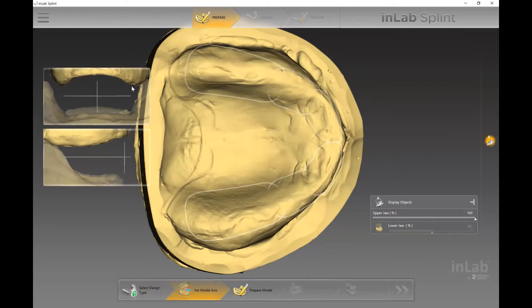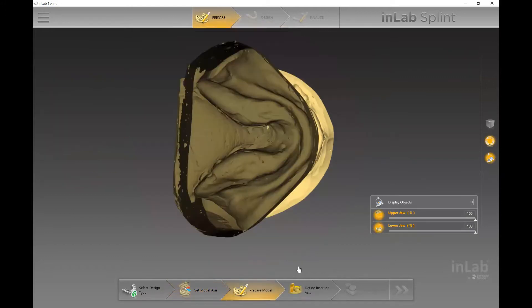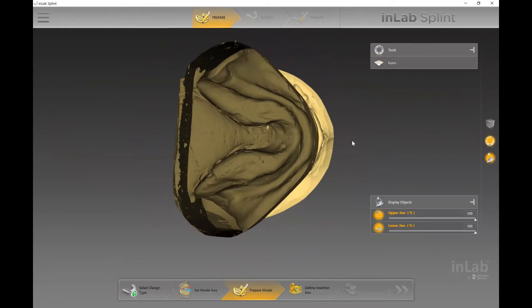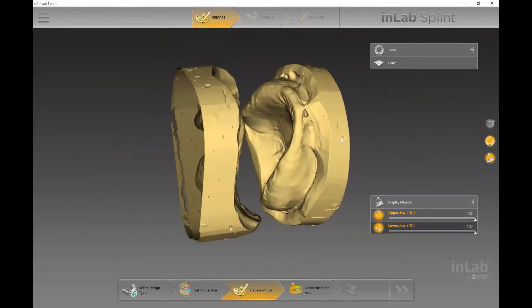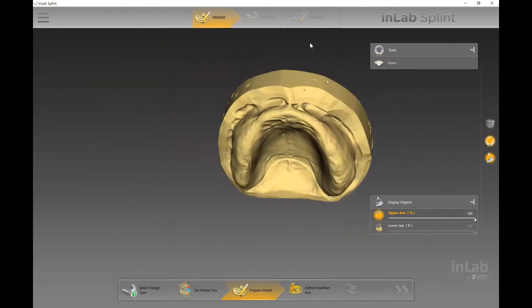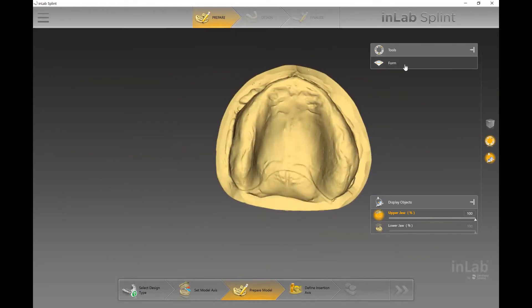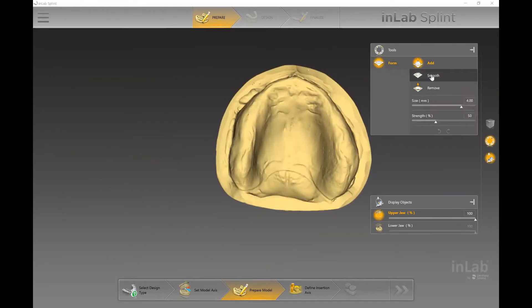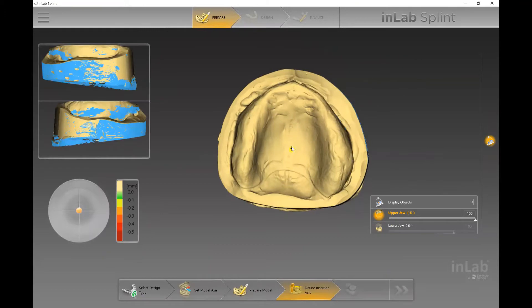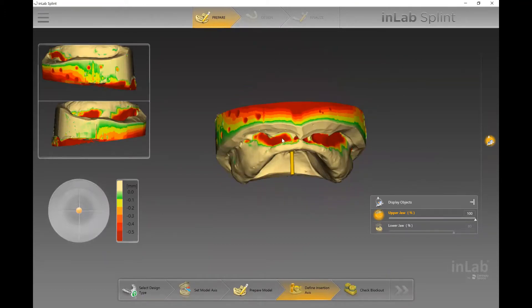As soon as I do so, the next step on the sidebar opens up. In the 'Set Model Axis' step, if you had completed this in the CAD software prior to downloading into the InLabSplint application, there's really nothing you have to do here — essentially we're looking at the midline and the occlusal plane. The next step, 'Prepare Model,' is much like 'Edit Model' in the CAD software, where we have a form tool to add, smooth, or remove material from the model — a last-minute way to double-check any changes needed before designing the tray.